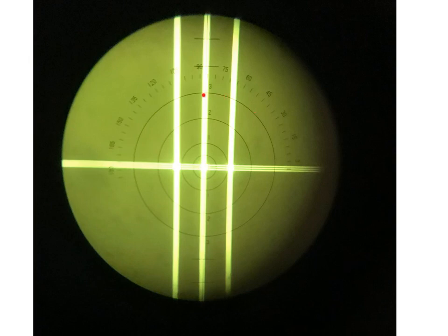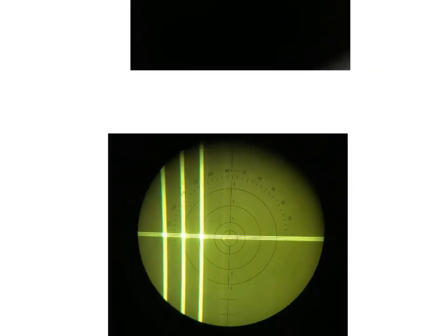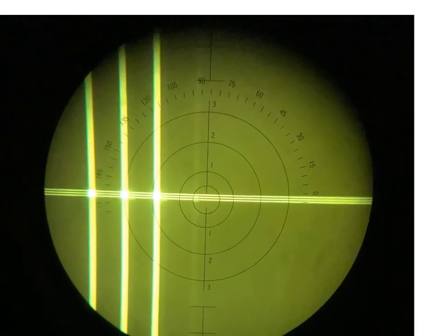When I put prism in, the target shifts. In this case, the target shifts to your left. You went from this to this.